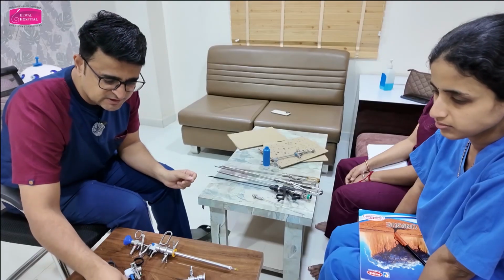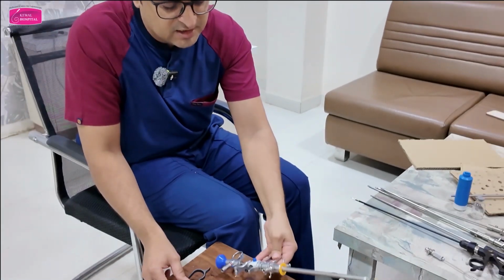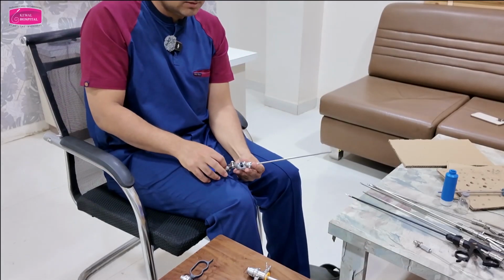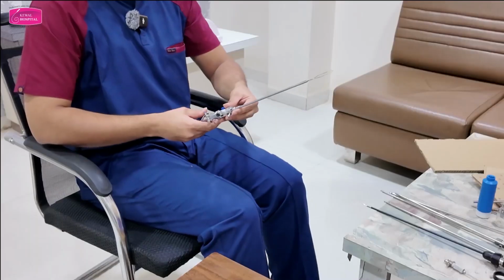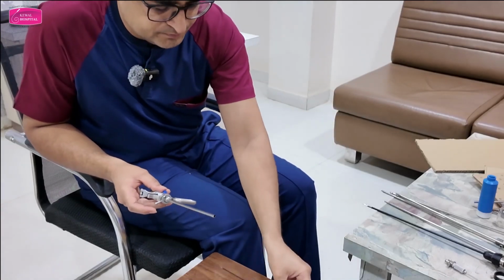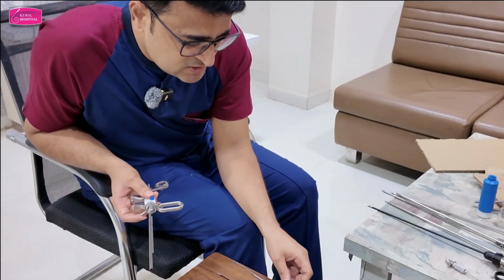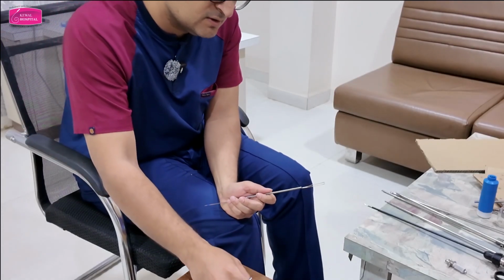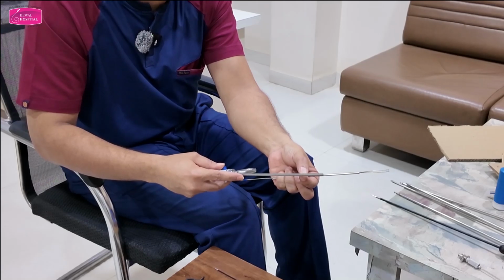Now about the 18 French one. So this is the working element. Now, between this working element and this working element, one more difference is there. Shall I remove the scope now? If you have understood. So handle scopes very delicately. Now you can see there are some differences. The loop is almost the same, but this loop has only this notch. See, this is having the pipe. The pipe of this resectoscope is on the working element itself. You're getting my point?